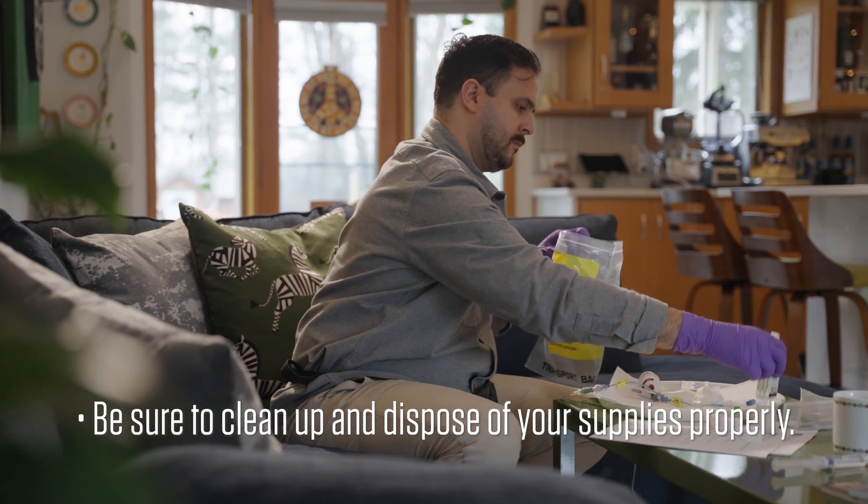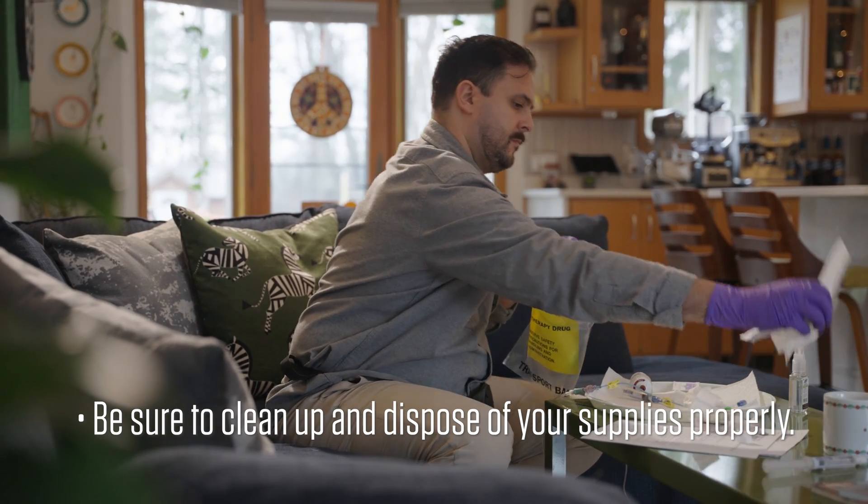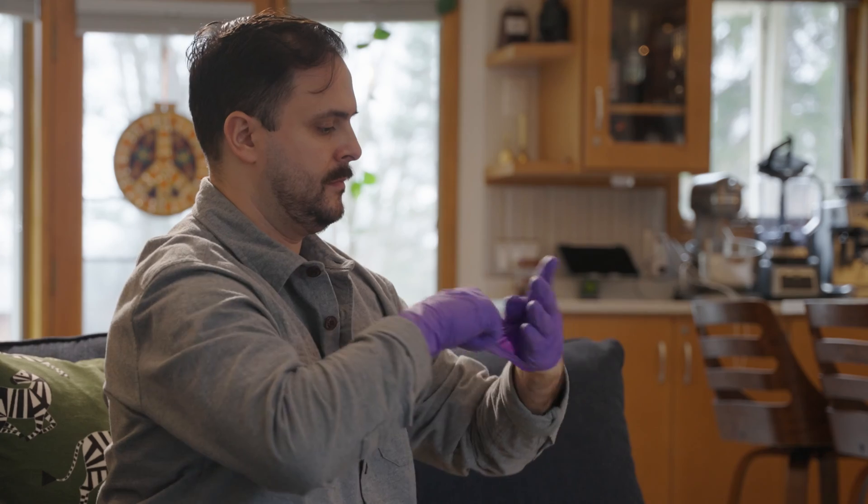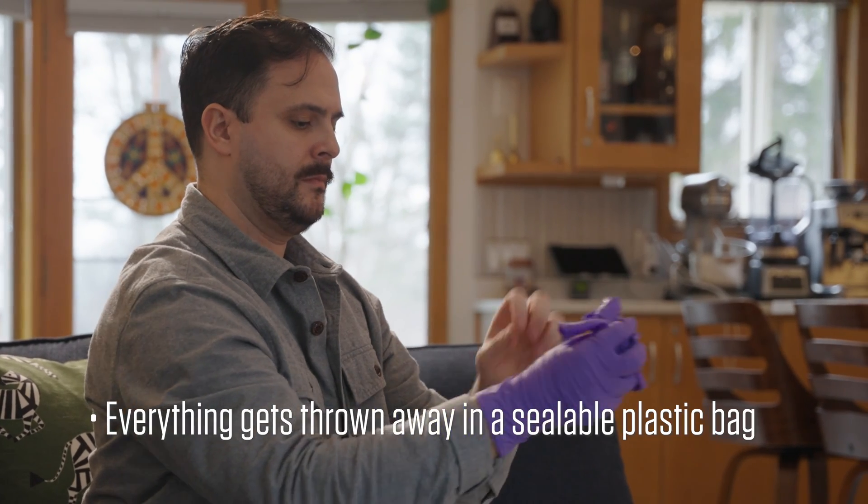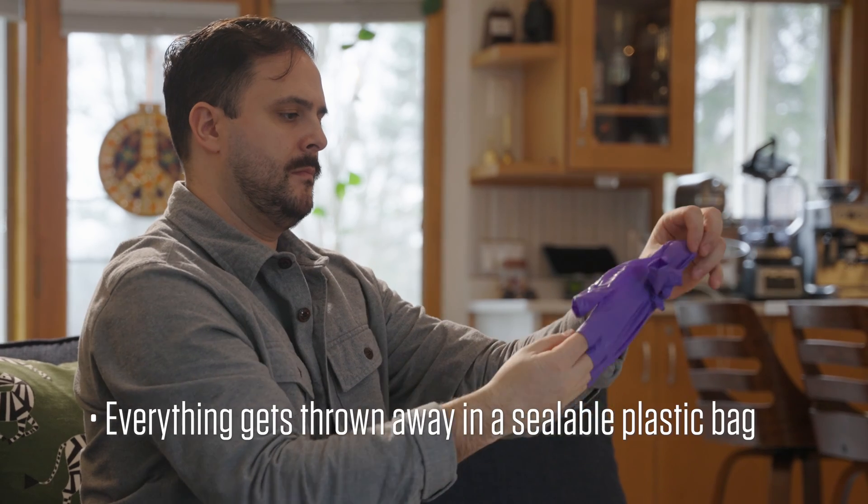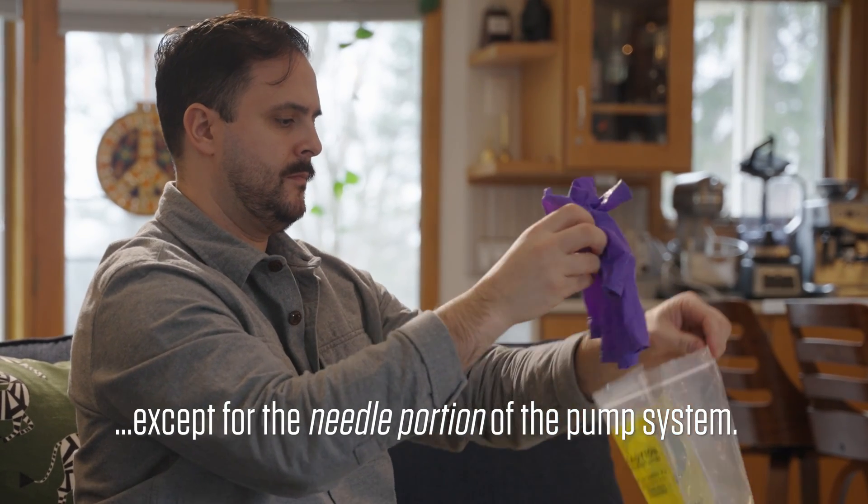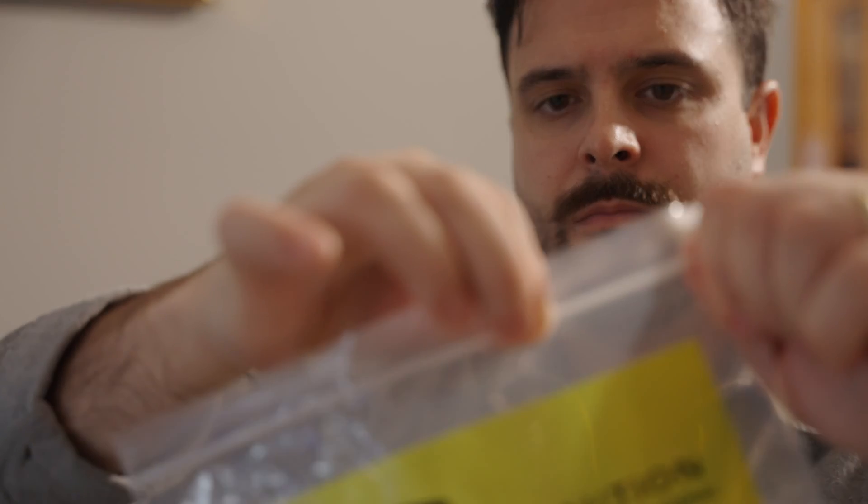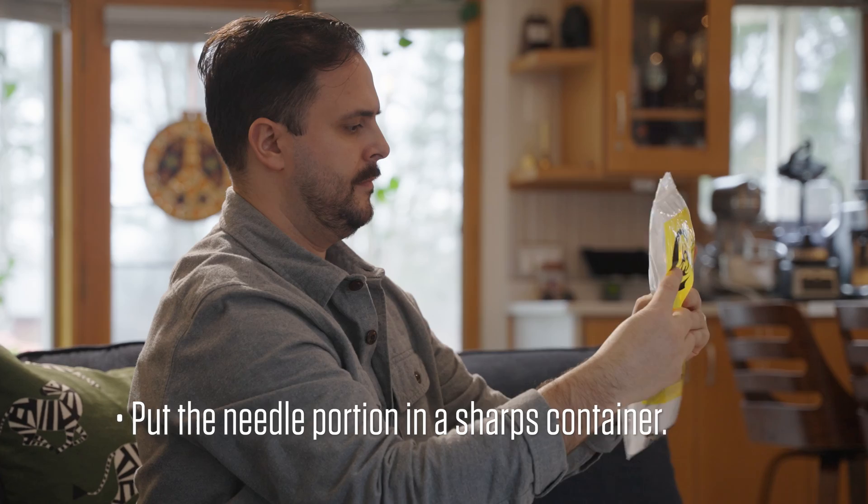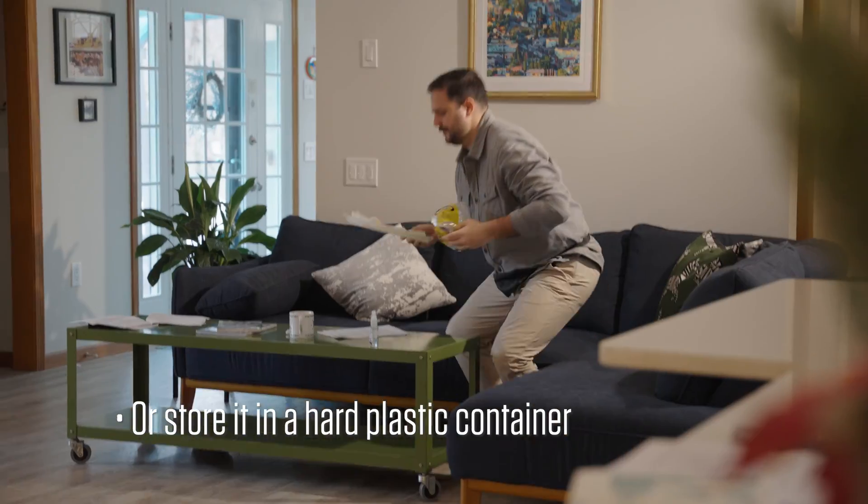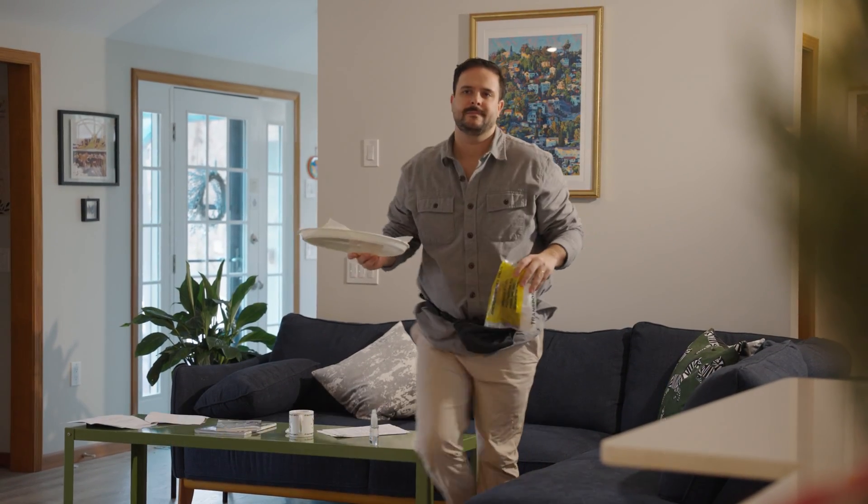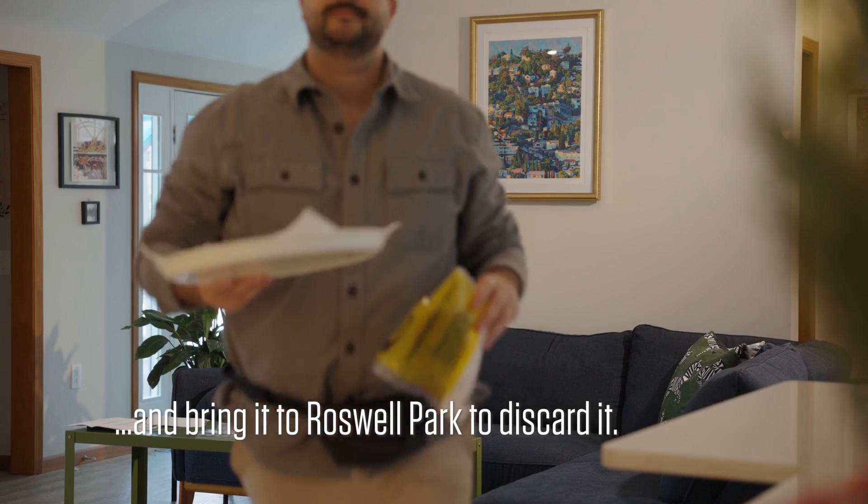Be sure to clean up and dispose of your supplies properly. Everything gets thrown away in a sealable plastic bag, except for the needle portion of the pump system. Put the needle portion in a sharps container, or store it in a hard plastic container and bring it to Roswell Park to discard it.